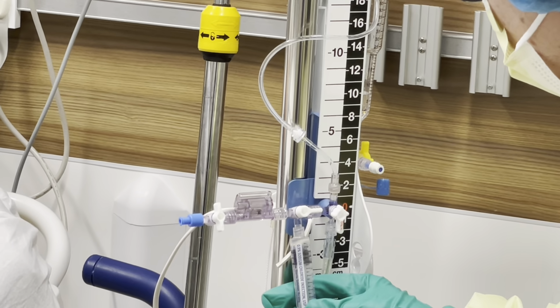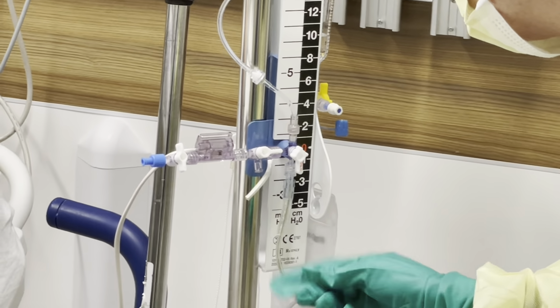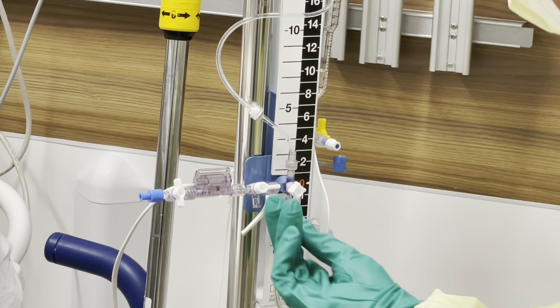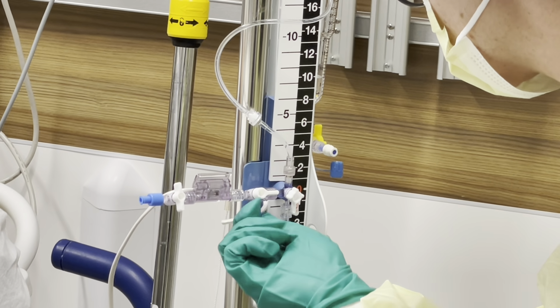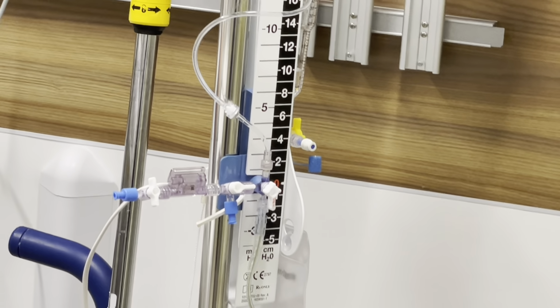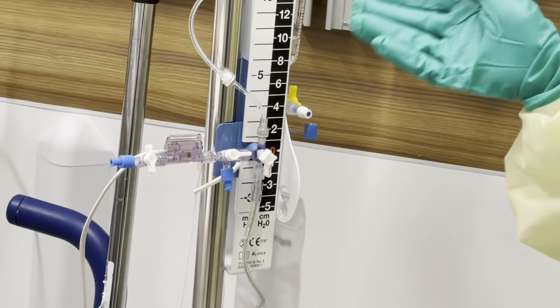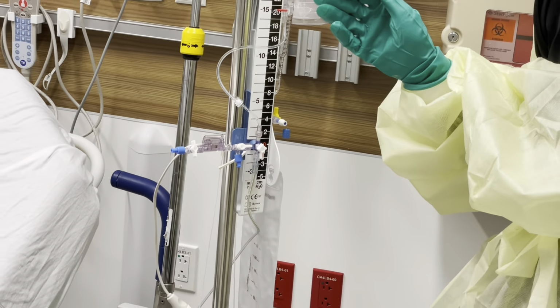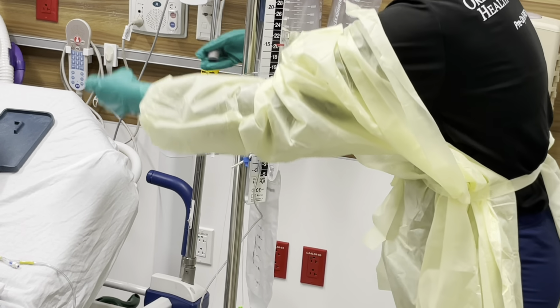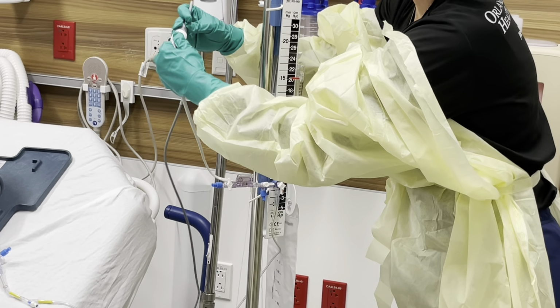And you can twist this off, okay? This is garbage. This is, again, not going to be hanging down like that. It's going to be in the back. You're going to put this down like that, okay? So now you're good. You would again grab your next buddy because you're still sterile, and when you zero it, you should still be sterile. But for the sake of everything, we will have our buddy come in. They will hook up our transducer, because again, they're going to be clean, not sterile.